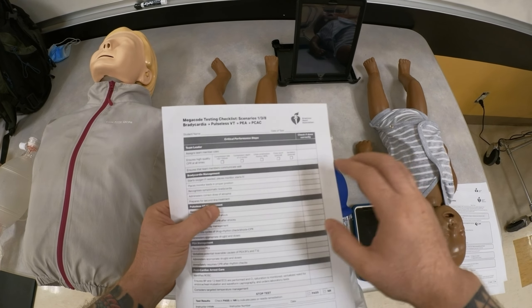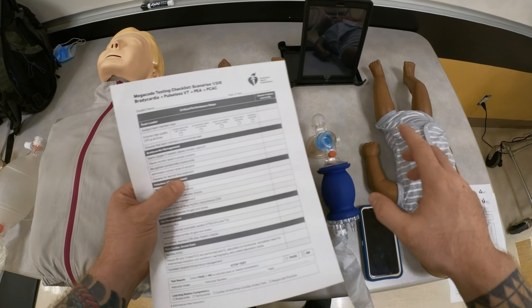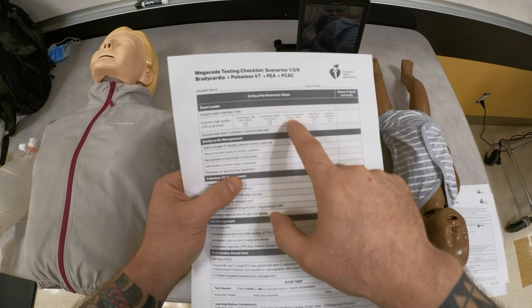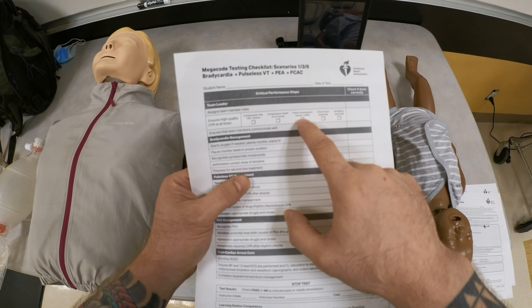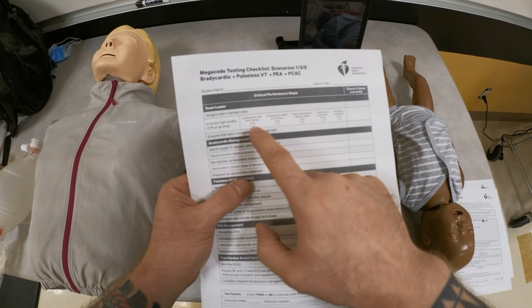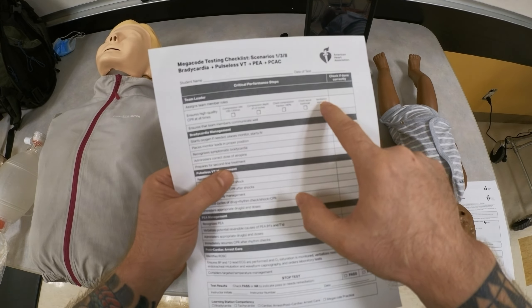These devices, the way they are set up now, cannot show you the number for CCF. To calculate CCF using these devices you basically need two stopwatches — I'll make a separate video outlining how to get CCF using two stopwatches. The only things they will show you are your depth, your rate, and your ability to provide ventilations.